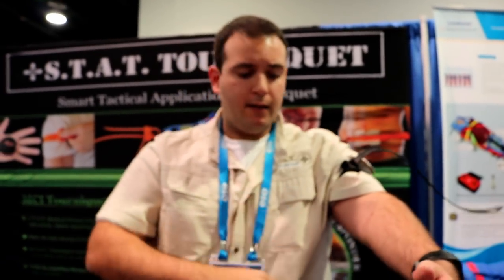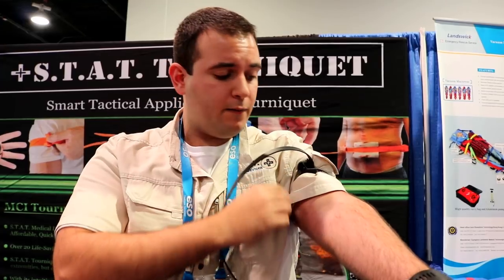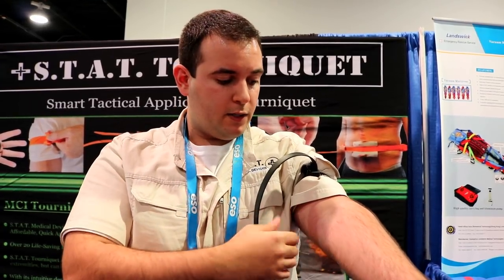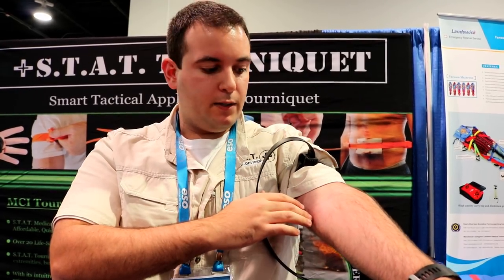If you're into conversions or whatnot, this is easy to let off. Let's say we put the bandage on and I want to check to see if there's arterial blood flow — all I have to do is press it once. I'll see if there's been arterial damage, and I can cinch it back down if there is.